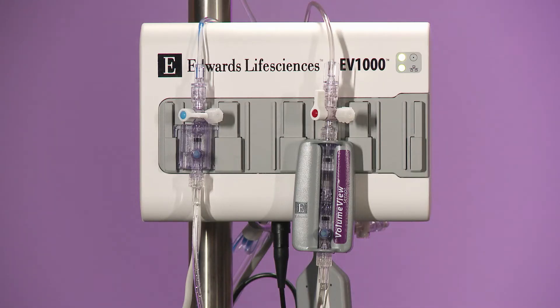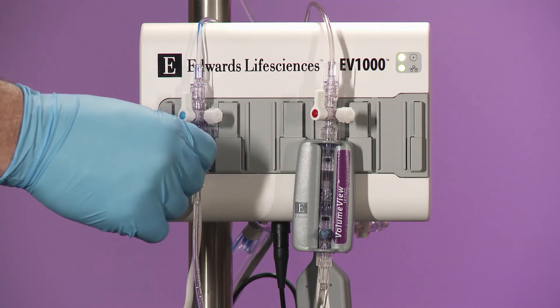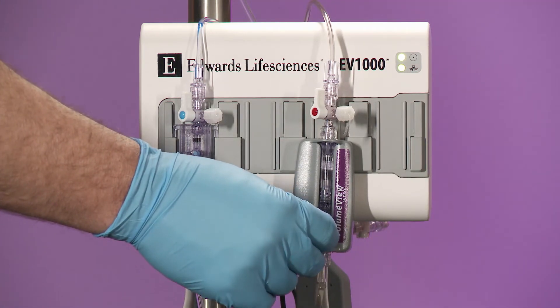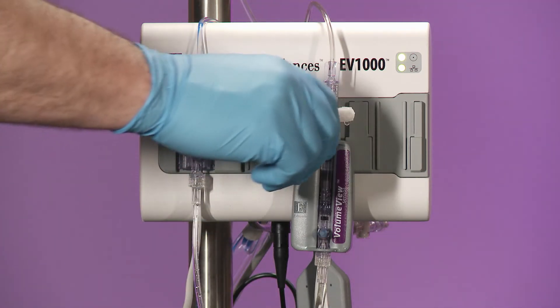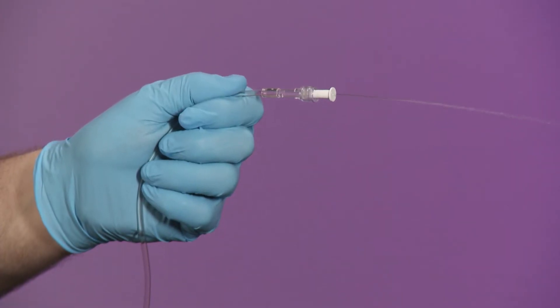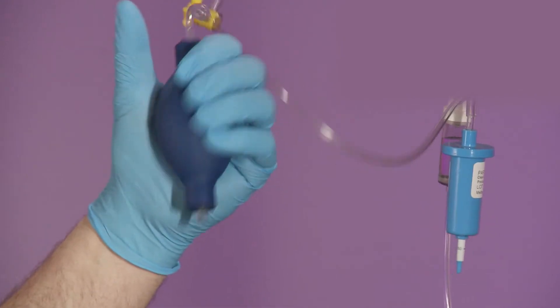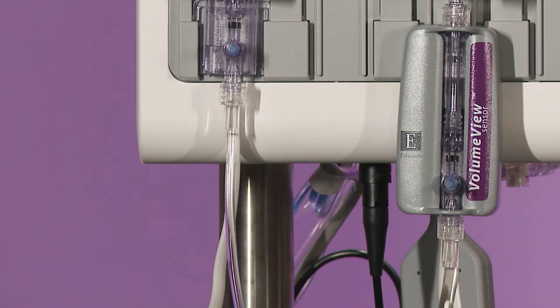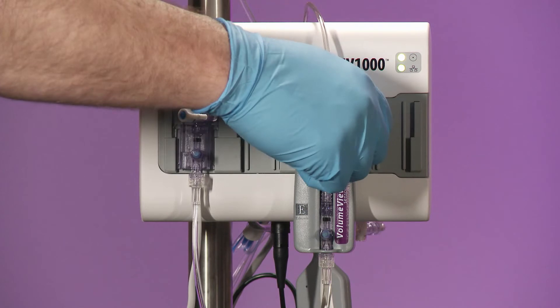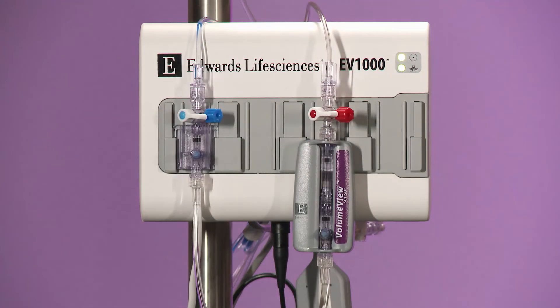Turn the TrueWave CVC transducer stopcock toward the pressure tubing. Pull the snap tab and prime the TrueWave CVC transducer through to the vented cap just above the transducer. Pull the snap tab and prime the volume view sensor through to the vented cap in the same manner. Turn the stopcock off to the vented cap on both the sensor and the transducer, and flush to the end of the pressure tubing while holding the pressure tubing upright for each component. Pressurize the infuser bag to 300 millimeters mercury. Pull the snap tab flush device for a fast flush and evacuate any residual air. Discard all vented caps in the system and replace with non-vented caps. This best practice in priming the system will mitigate residual air bubbles.